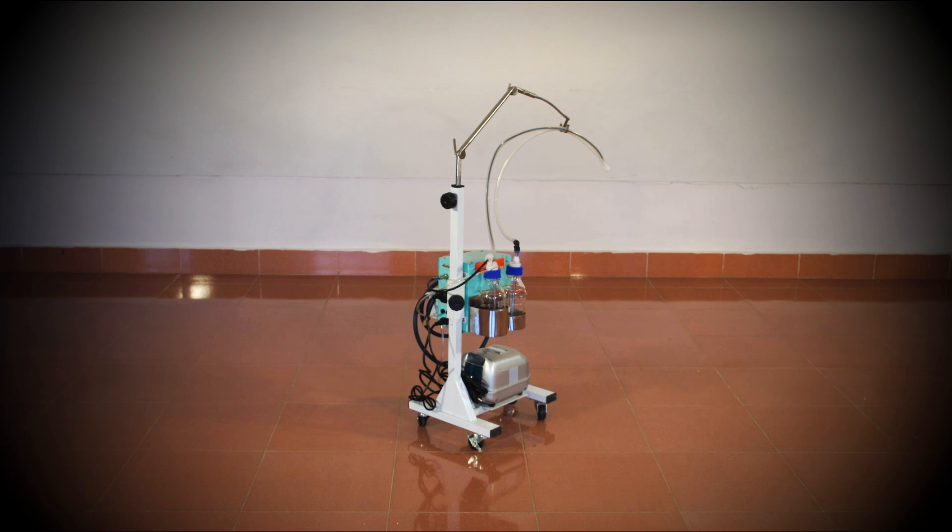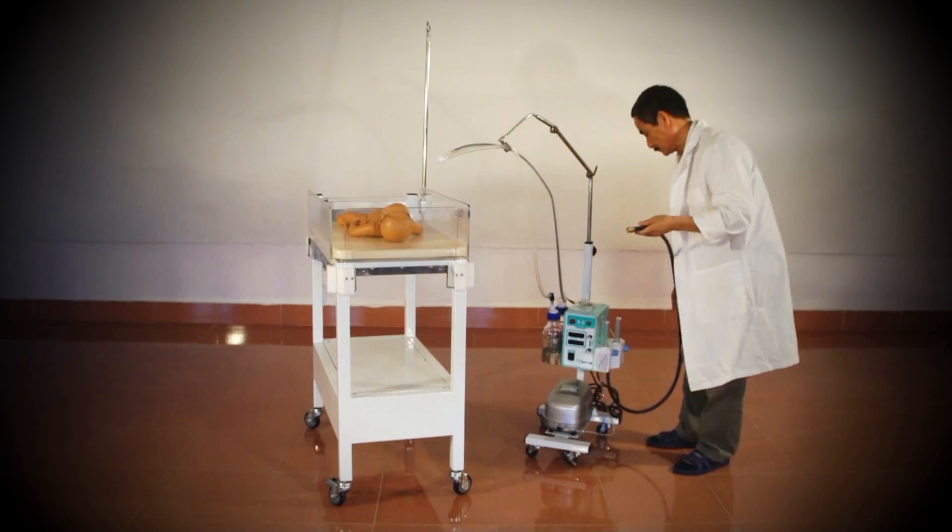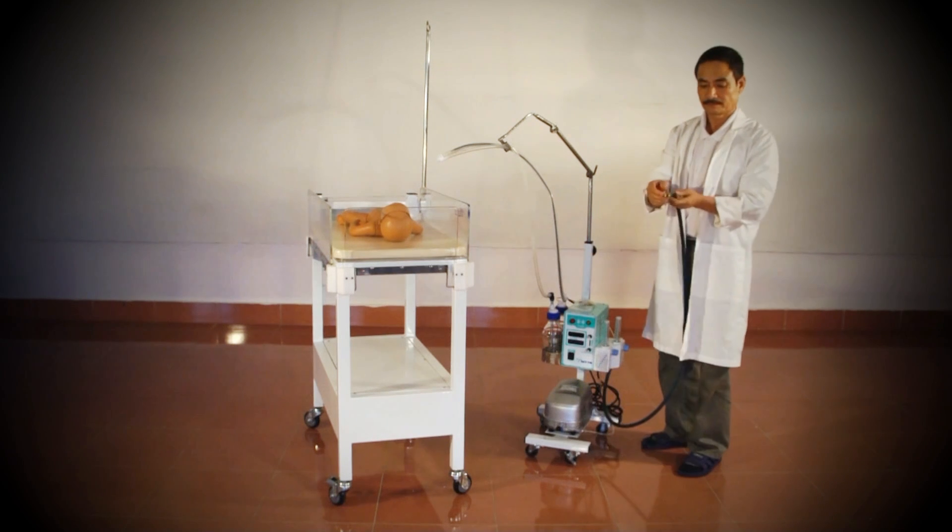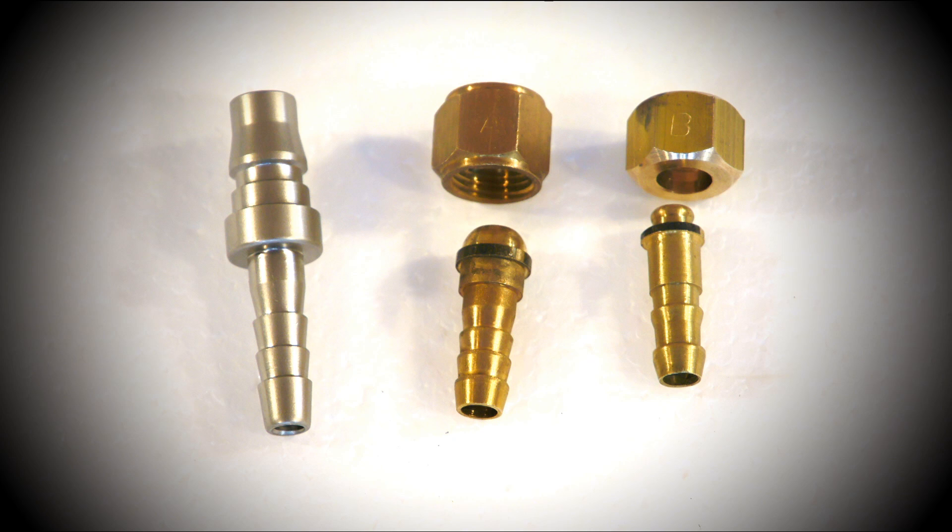The MTTS CPAP can be connected to the three most common oxygen sources: hospital walled gas system, oxygen cylinder, or oxygen concentrator. Because different systems require different connectors, three common types of connectors are included with each CPAP machine.